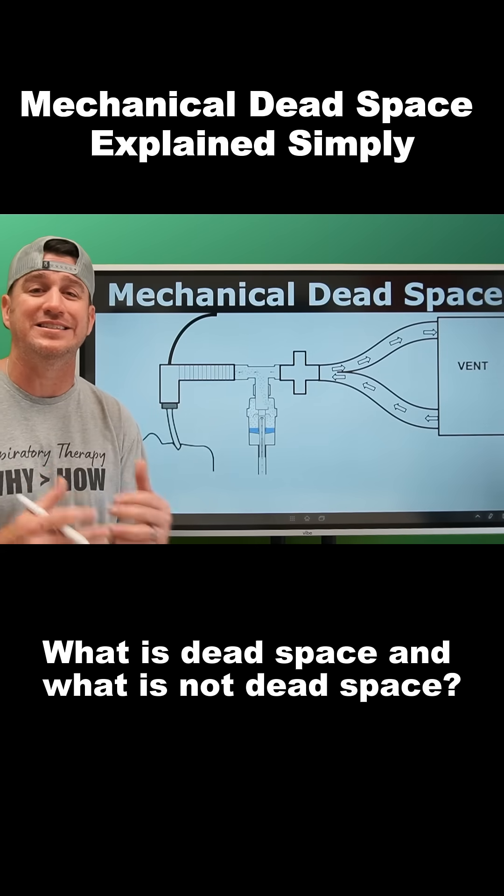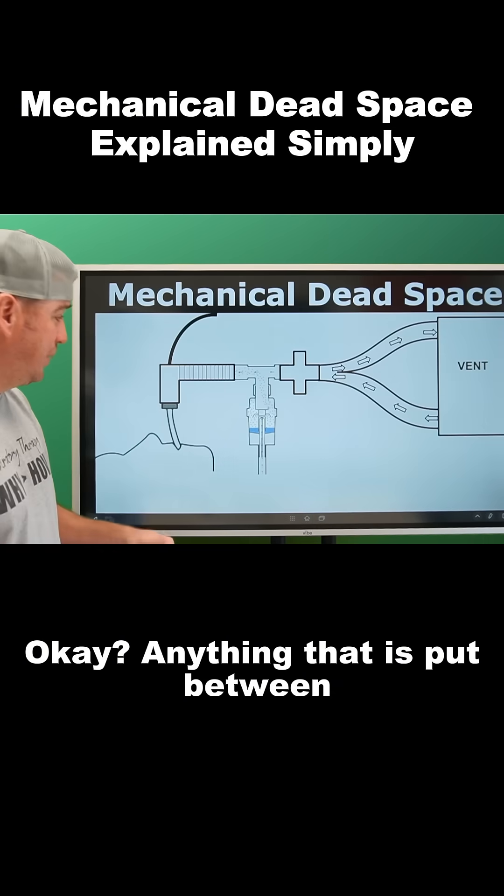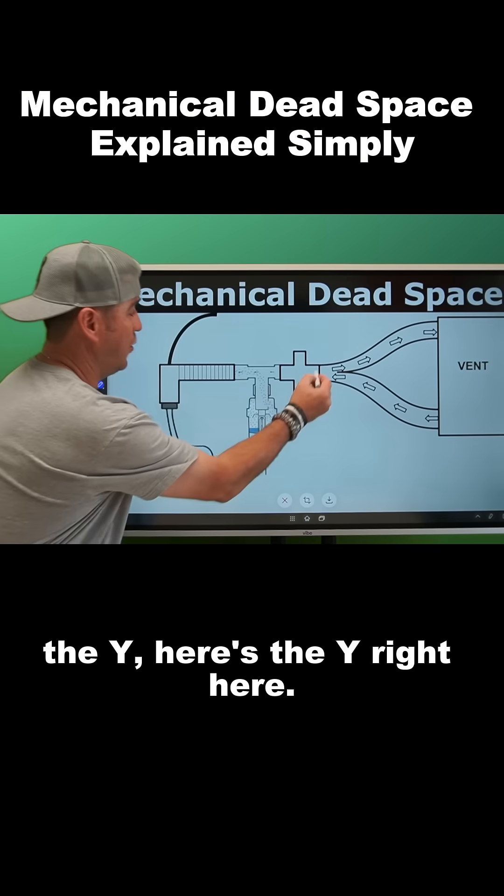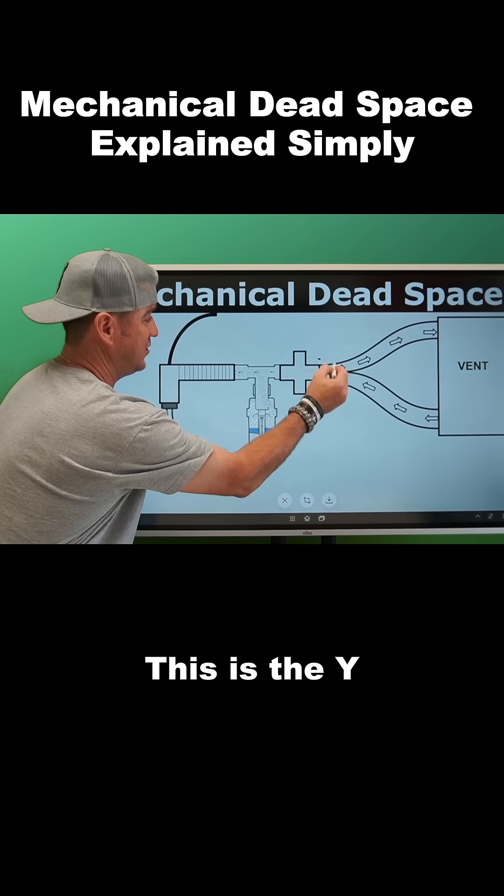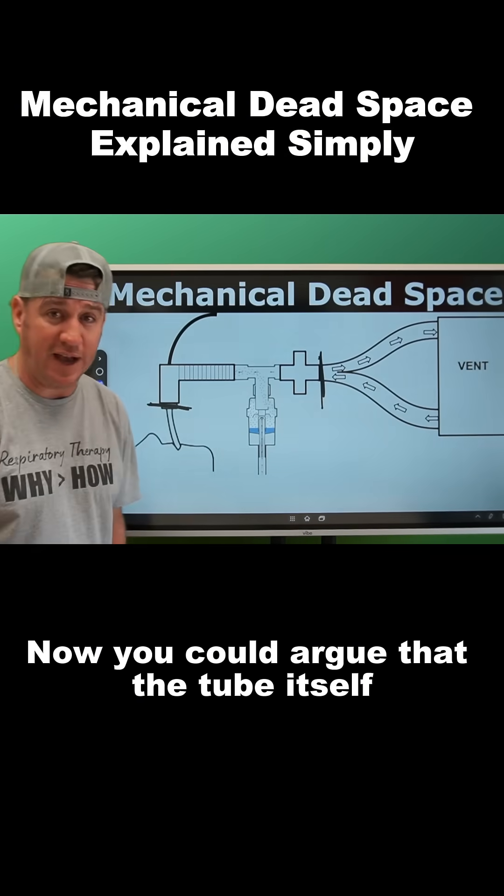What is dead space and what is not dead space? Anything that is put between the Y—here's the Y right here—this is the Y and the connection of the endotracheal tube.